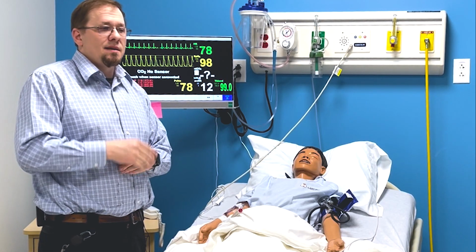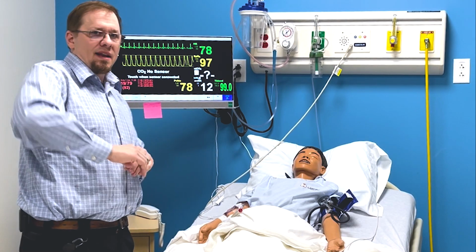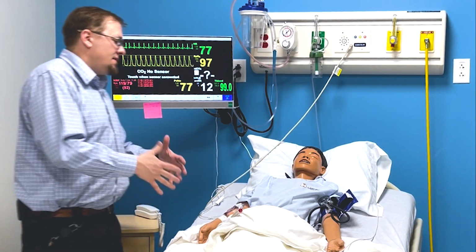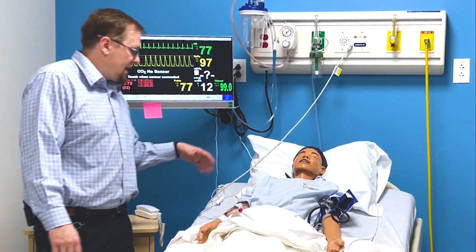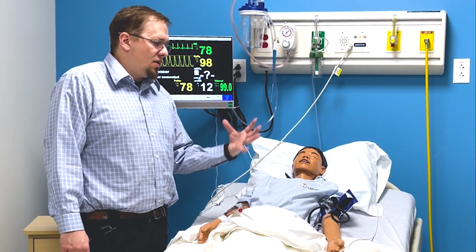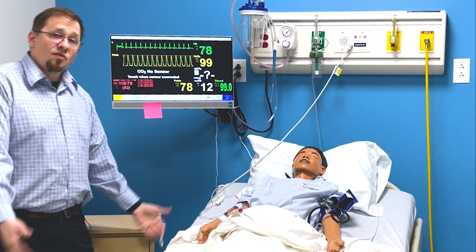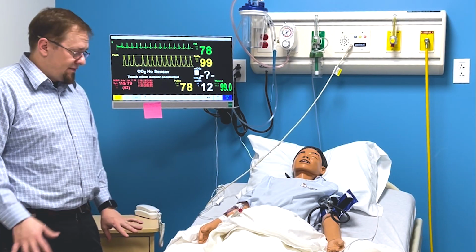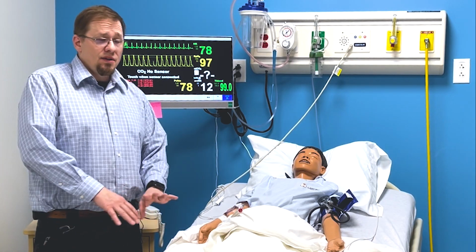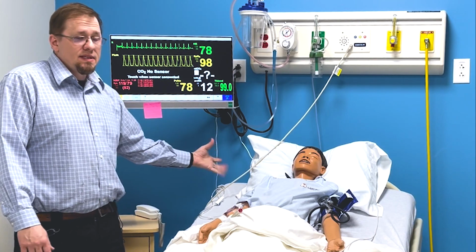And I make sure they're doing this and having their conversations. Because then usually something I may have forgotten in my orientation, they'll mention, and I can then add that in when they're done. At that point, I have everybody step back and I'll go through any other unique things for this mannequin, go over the ground rules, what I expect, what I don't, and that sort of thing. From this point on, we go over bed controls because all the beds are a little bit different. Usually I tell them they have to have it powered on and use the right controls. I'll go over the CPR thing.